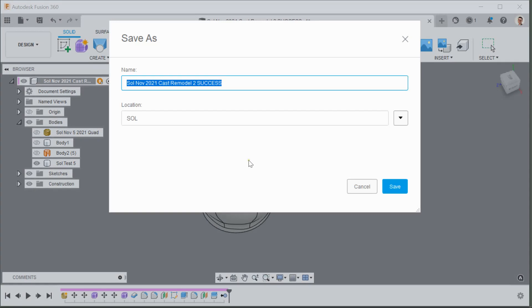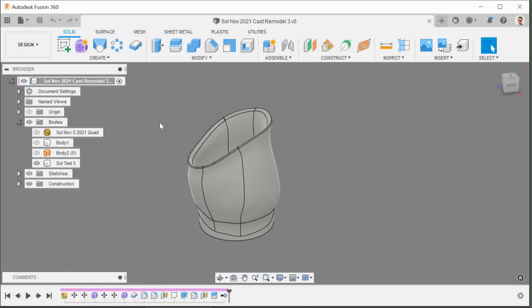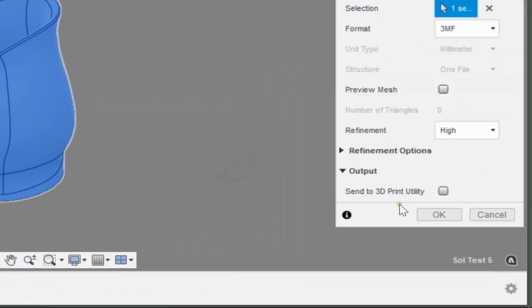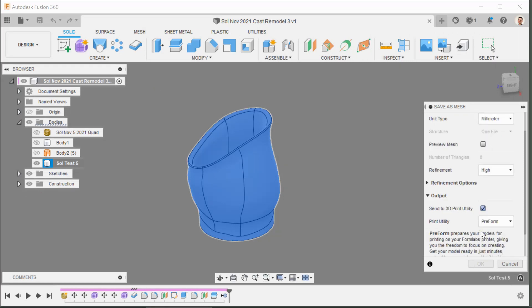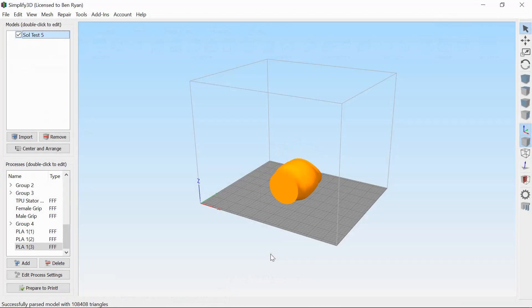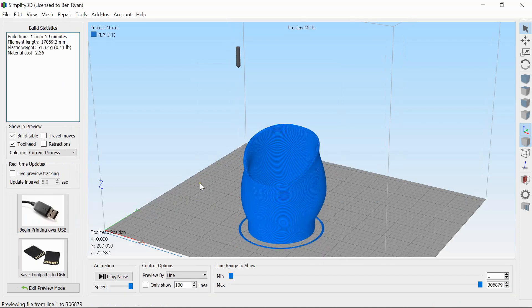I save a permanent log of all versions — remodel 2, remodel 3, and so on. I save it into Sol's file, then open Simplify 3D. There's also another way: I have test socket 5 saved as a mesh, sent to the 3D print utility. Clicking on that automatically opens Simplify 3D. It exports nicely as a 3MF file. I press Ctrl+L to lift the body, load the existing test socket profile, and prepare to print.